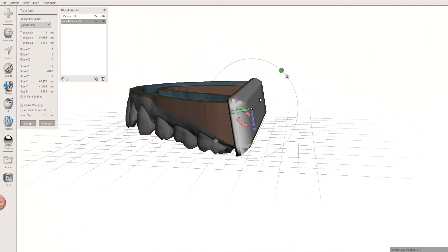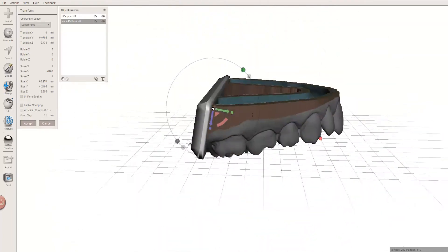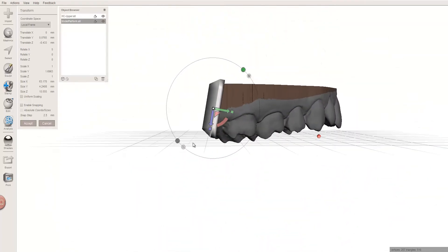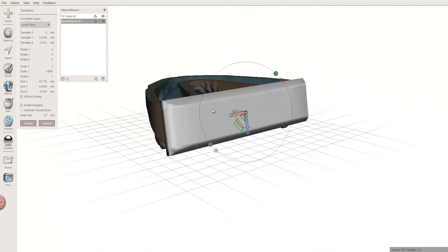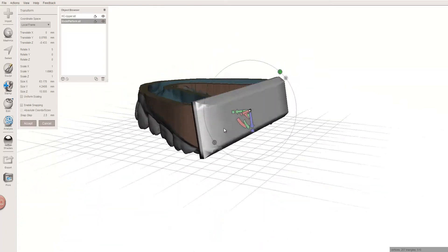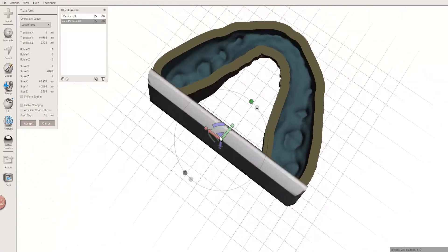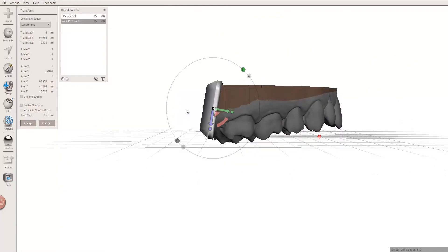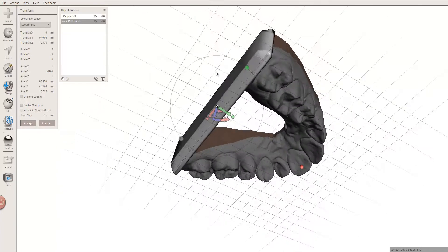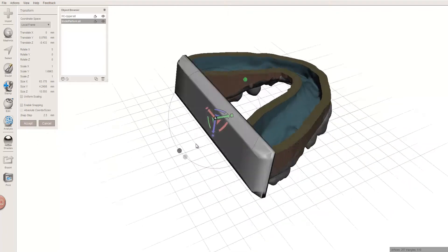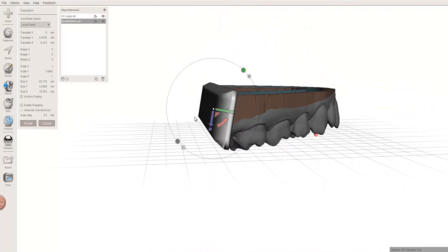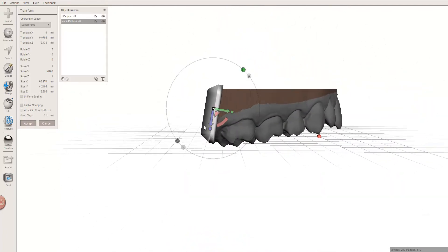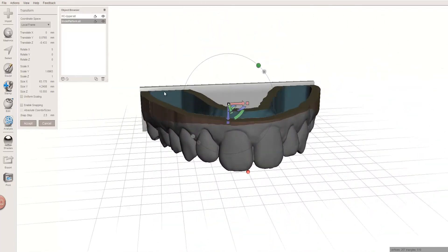This platform right here, my original size is about 1 ml worth of resin, and this maybe it's one and a half. What does that equate to in cost? About 15 cents to 20 some cents. So a little bit of effort, a little bit of wasted resin is going to make everything print better and support it a little better, without the hassle of having to do an angled distal plane cut.